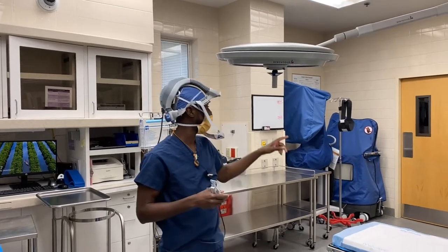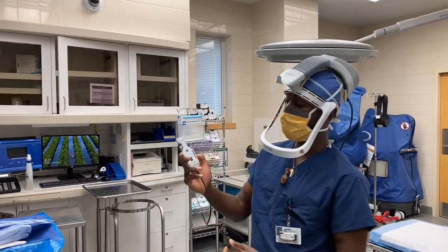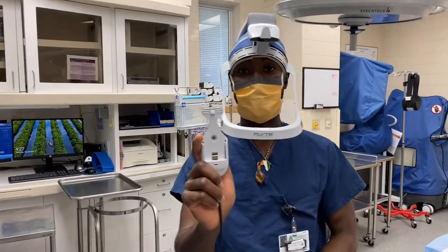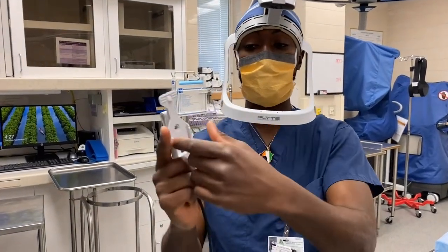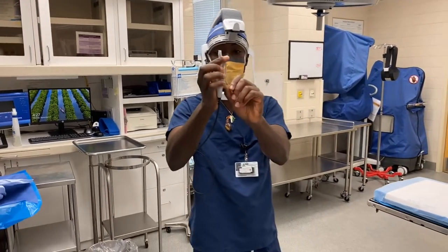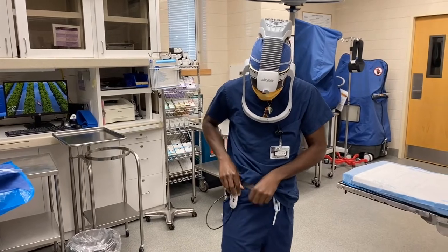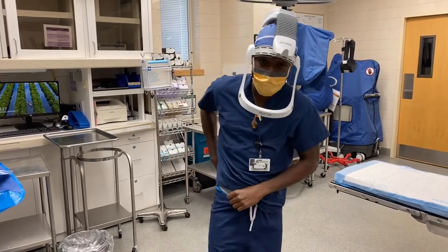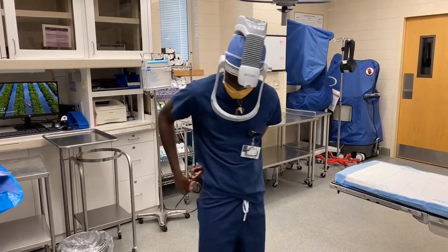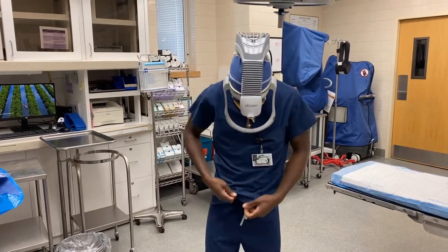Then you take the battery — usually our batteries snap right onto this. I don't have one with me, but that's what you do: you snap it on, you can see the grooves there. It typically has a clip right here, so you clip it right to your pants. Some people put it in the front; I like putting it in the back just because I don't want the cord to get in my way during cases.